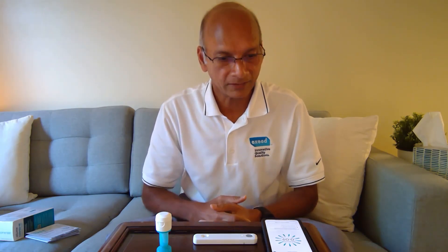We'll check in another five minutes when the test is over — fingers crossed. We hope we get a negative result because I'm fully vaccinated and I don't expect a positive result. We have about 20 seconds left in the test. So far everything seems to have gone well — no interruptions. The light is still solid green. The counter is counting down: seven, six, five, four, three, two. Your test is negative for COVID-19, just as we expected.